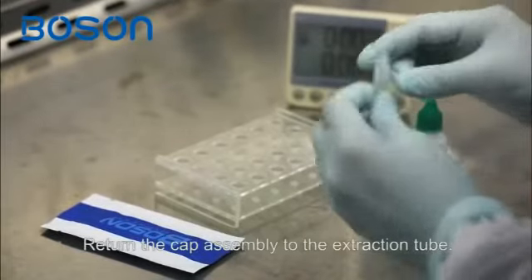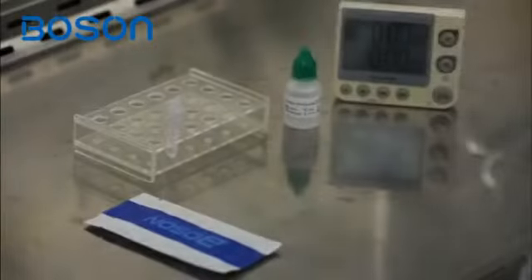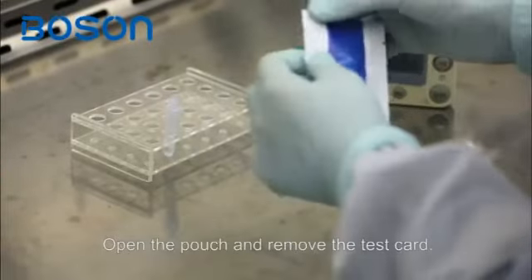Return the cap assembly to the extraction tube. Open the pouch and remove the test card.